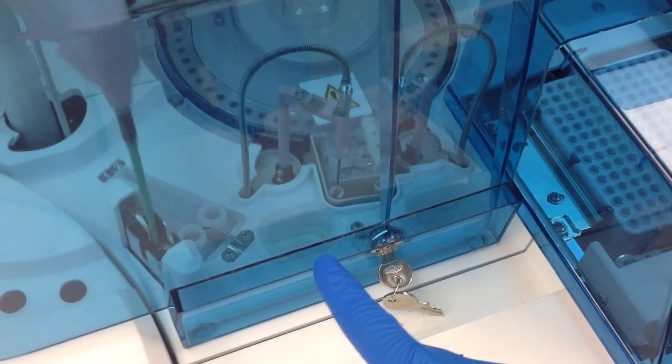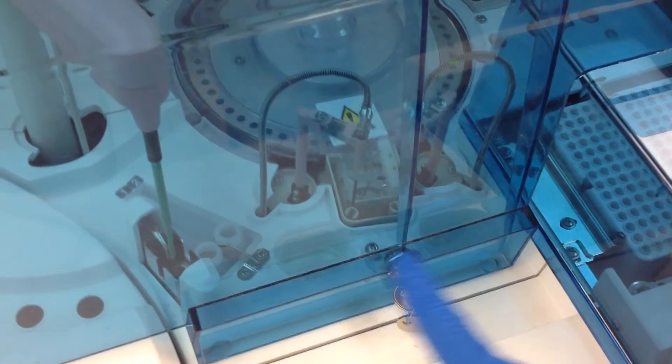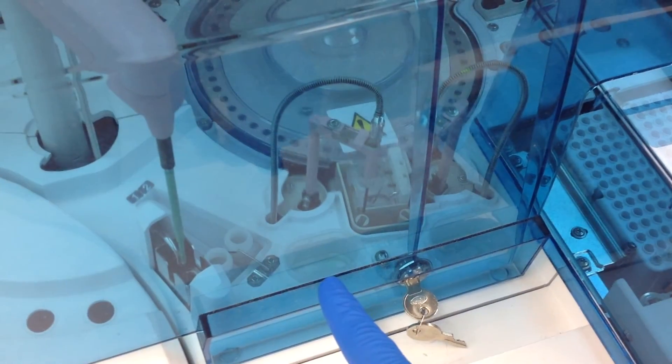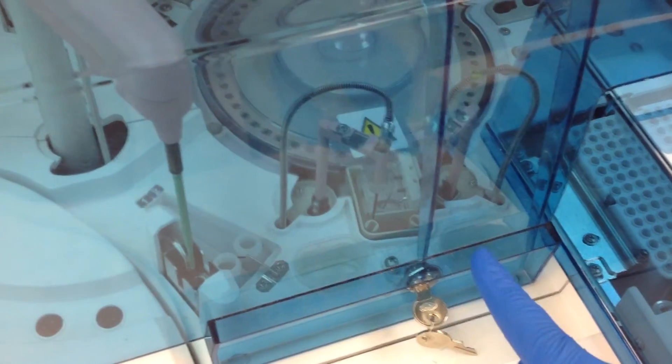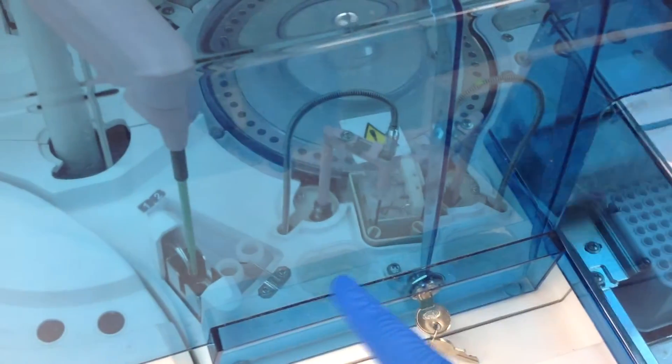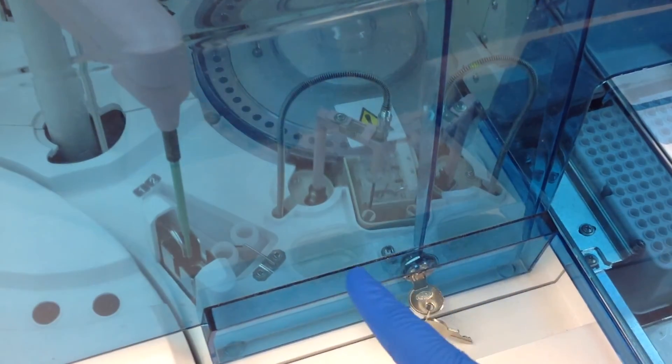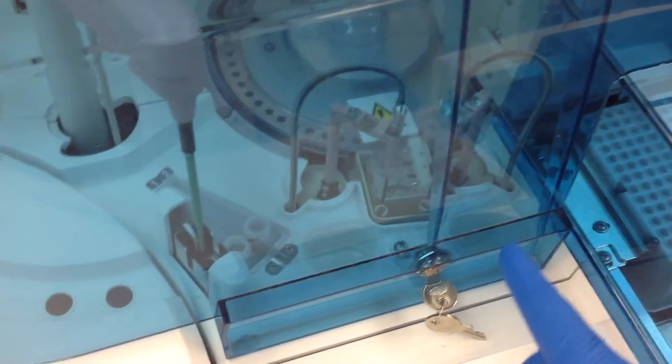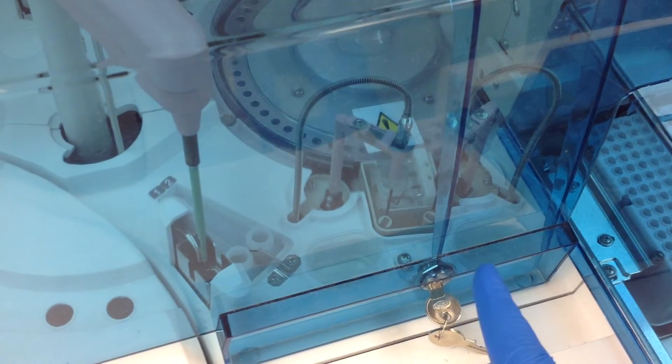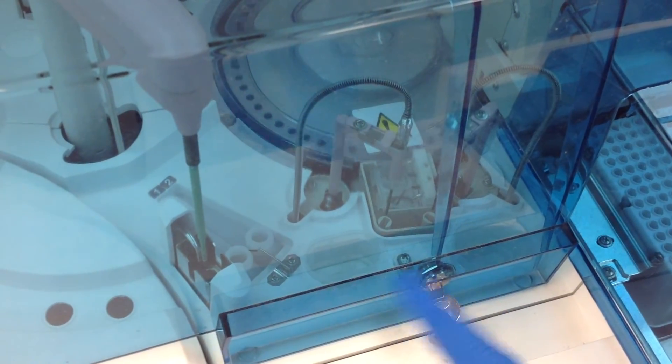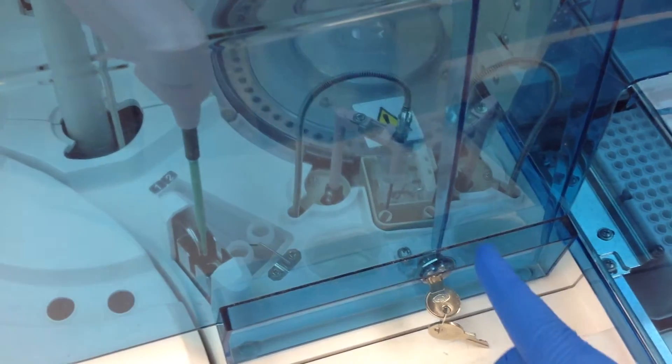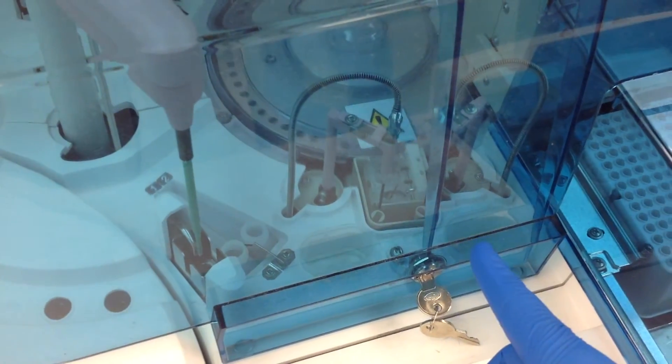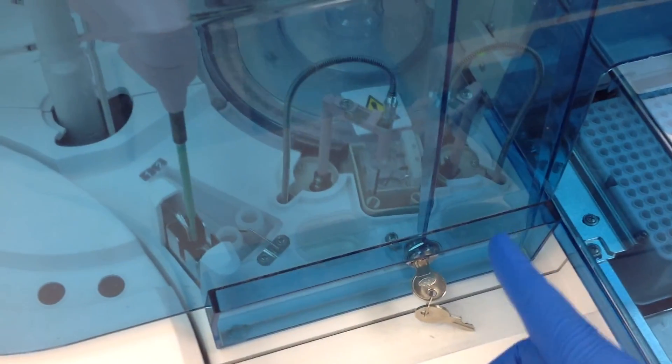And you would just go ahead and dump out any of the remaining cleaning solution, and then rinse them out with DI water, and then dry them. Because if you don't dry them and rinse them out with DI water, you'll likely get some crystal forming in the containers, and you don't want to run that through the machine.